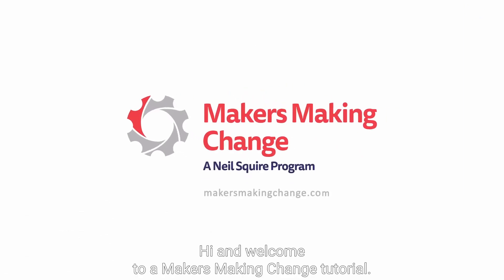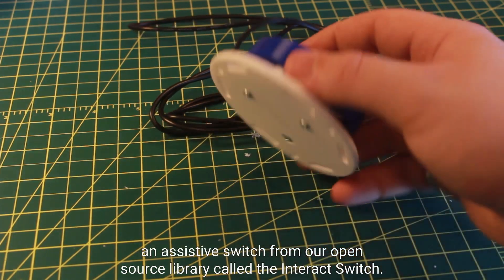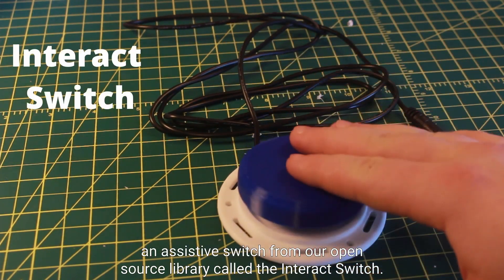Hi and welcome to a Makers Making Change tutorial. In this video we'll show you how to build an assistive switch from our open source library called the Interact Switch.